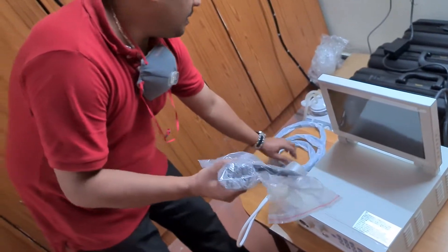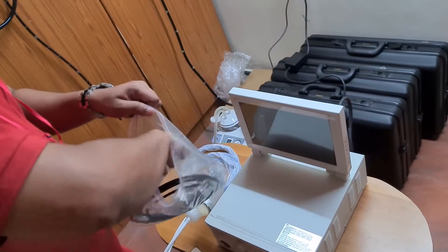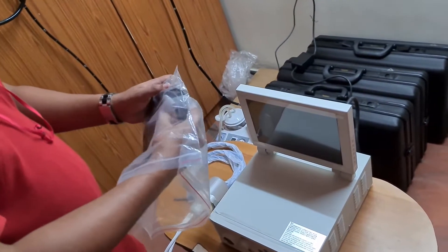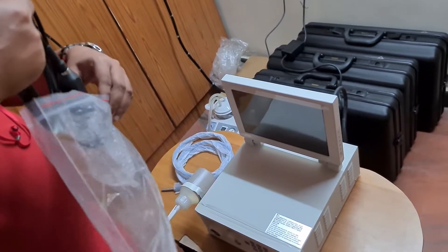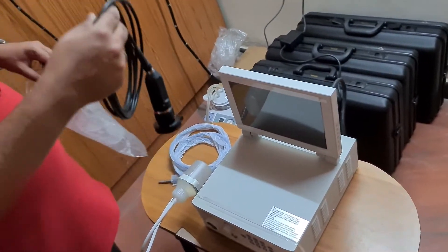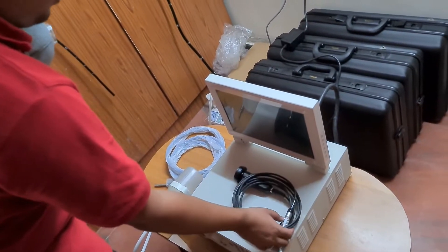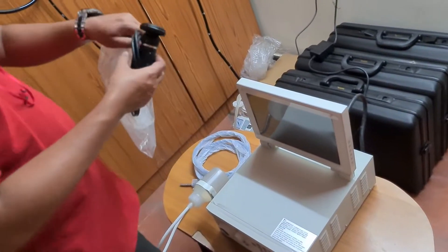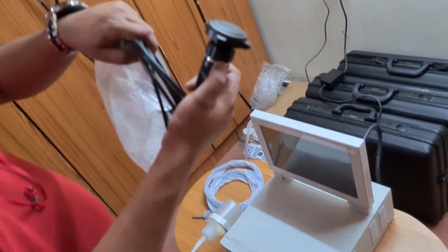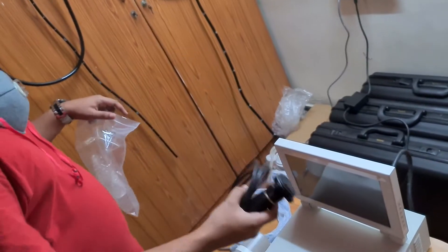This is the 4K camera head — you will get one of the best outputs, the best clarity and resolution from this camera head. You have to make sure that the scope you are using is free from damage and compatible with this camera head. It is a 22mm diameter camera head, so the scope you have should also be compatible with this base.